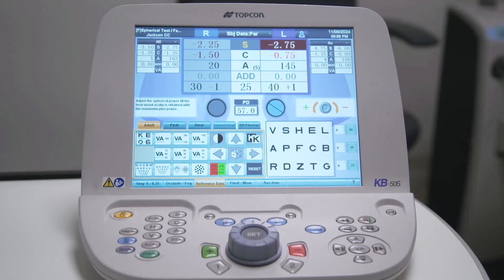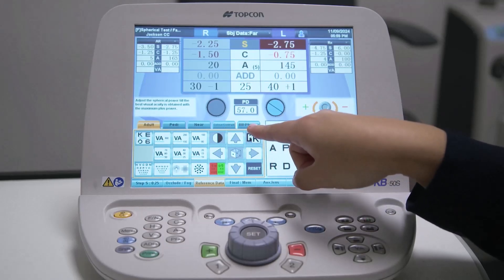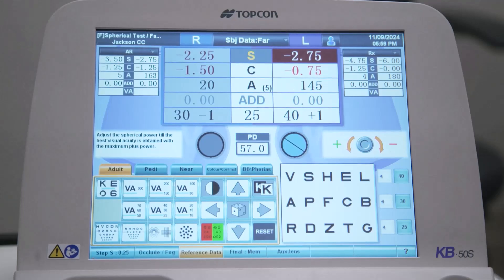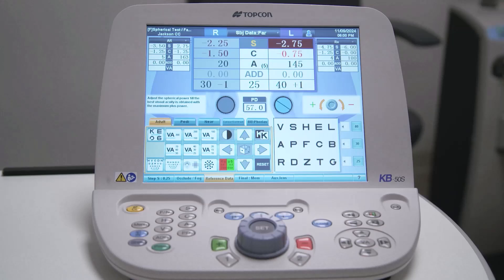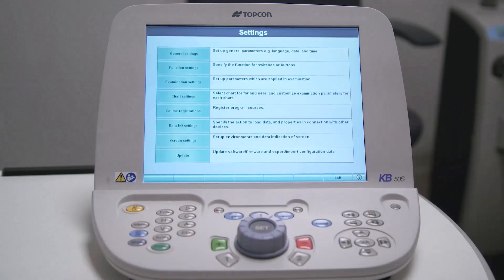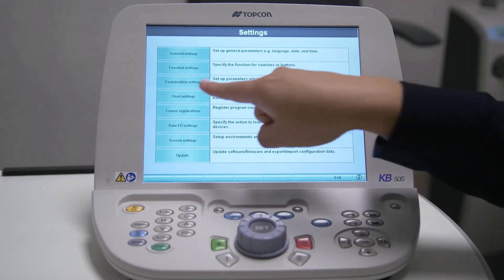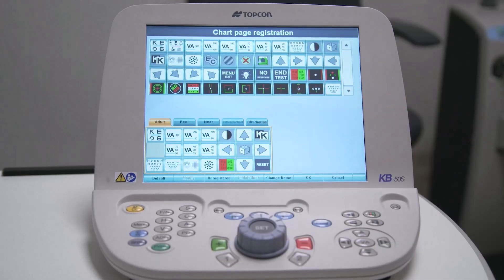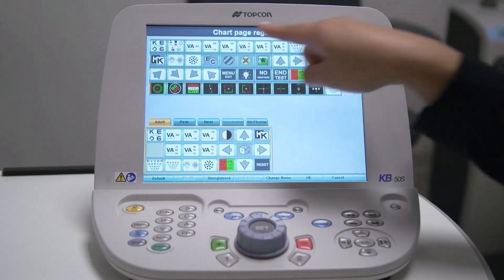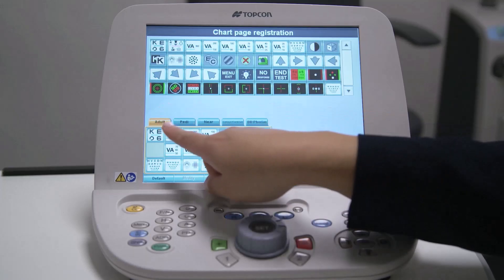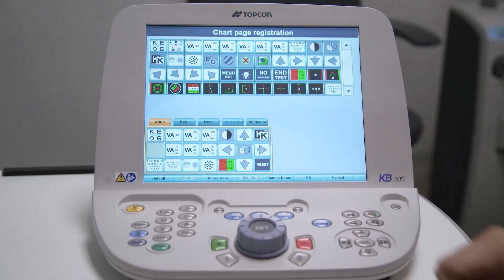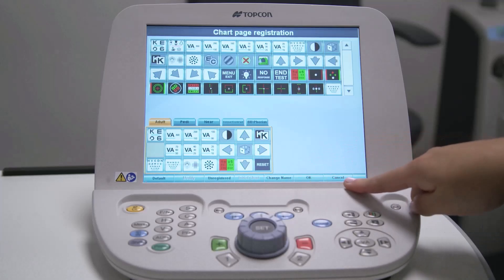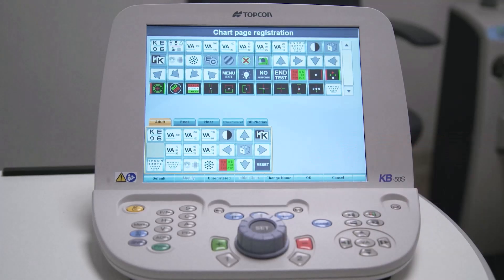Looking at the screen chart area of your KB50S, you will see five tabs, each with its own name. Below each tab, there are 21 available chart slots that can be used to create a personalized chart layout. Start by pressing and holding down the shift key while pressing the menu button. This will display the settings menu. Next, press the chart settings button and the chart page registration button. At the top of this new screen, you will see a list of test chart icons — these are all the charts available in the digital chart connected to the system. In the lower left area of the screen are the five chart tabs from the main screen. To the bottom of these tabs is a display of the test parameters for the charts added to the tabs. Along the bottom are command buttons to use when modifying the tabs and the charts each tab contains.